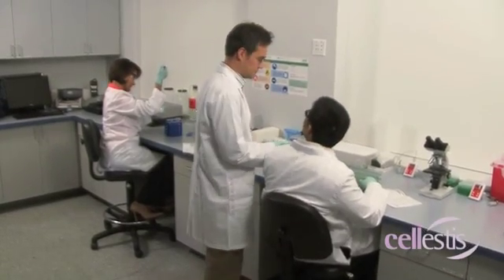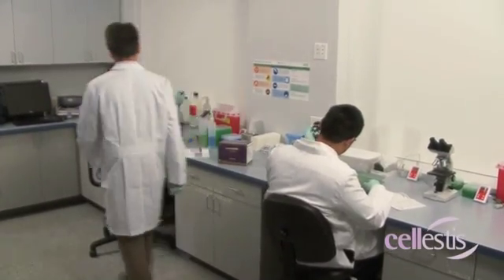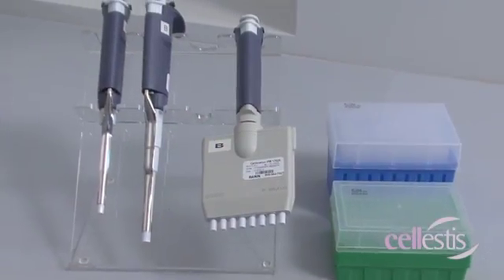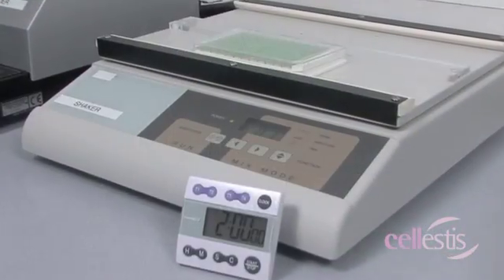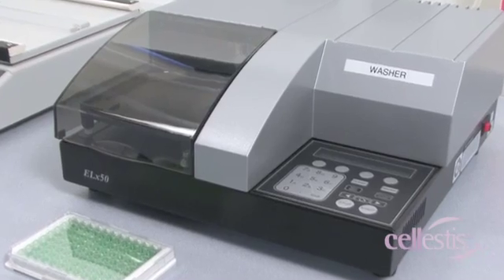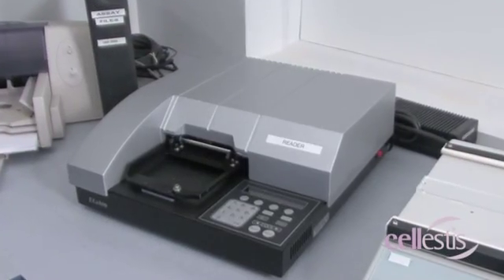If performing the QFT ELISA manually, the recommended equipment includes pipettes, a microplate shaker, microplate washer, and a microplate reader.